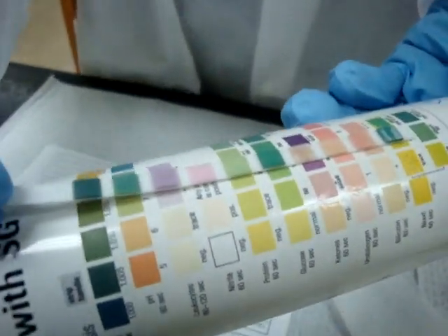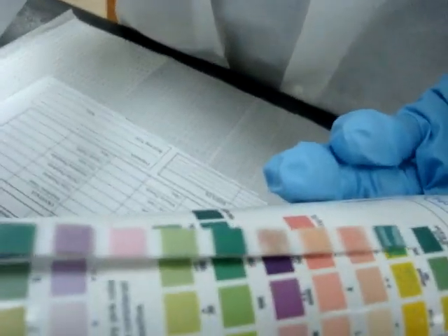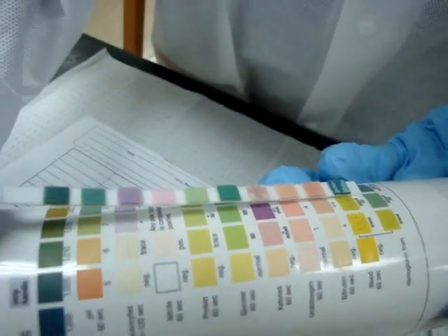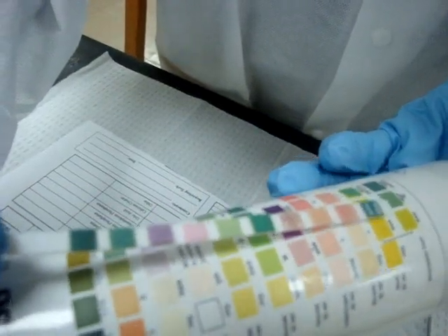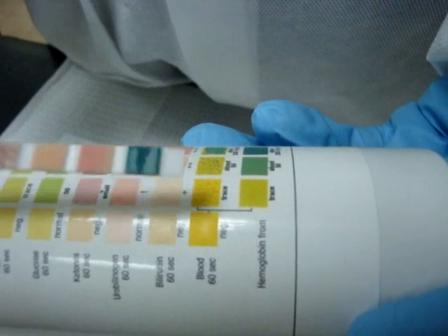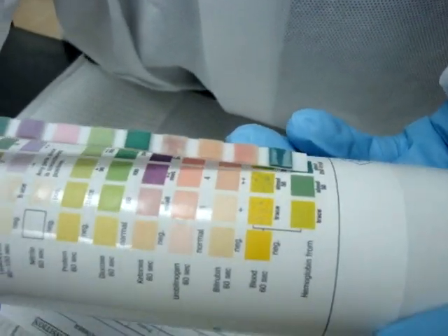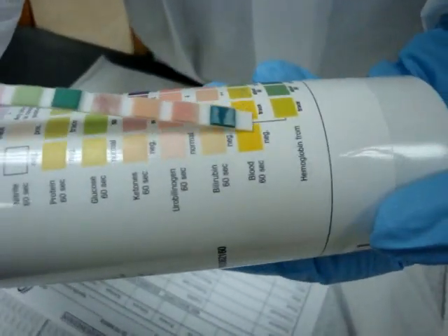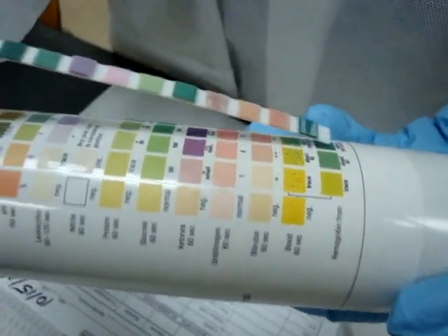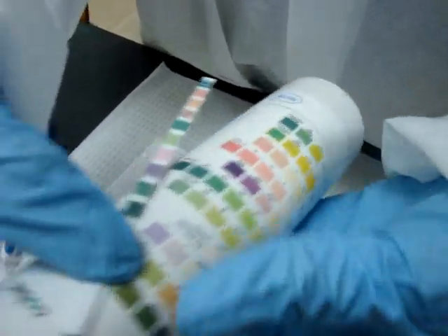There's a positive nitrite because it's pink. The protein — as you see it says 100 plus, so it's a two plus, and that's the way we report it out in our lab — as a two plus. When we get to glucose, we see that it is between 250 and 500. The ketones are one plus. The urobilinogen is 4. The bilirubin is three plus. And the blood — blood is reported as both intact red cells and hemoglobin. In this case there's so much blood that we can't tell, but blood is blood, so we use trace, one plus, two plus, and three plus. We do not report the number of cells here — we will report the number of cells when we look at the microscope. Here we have a three plus blood.